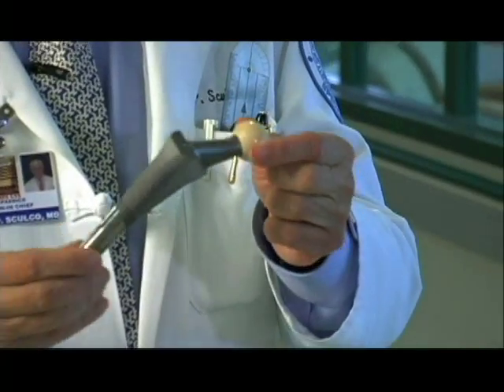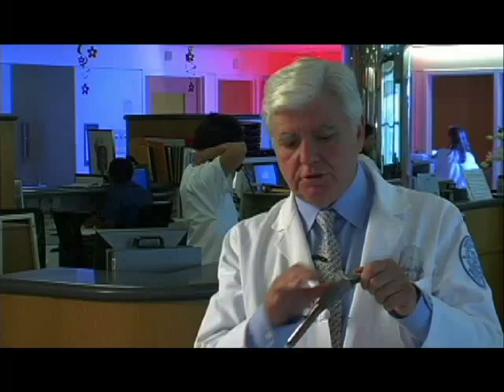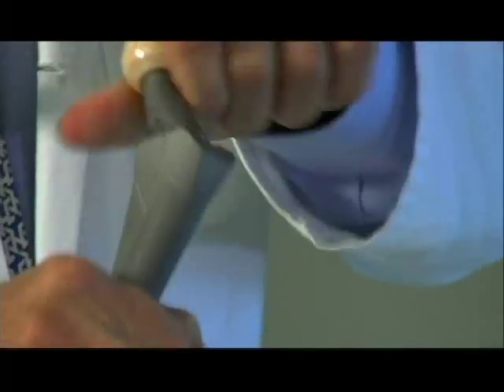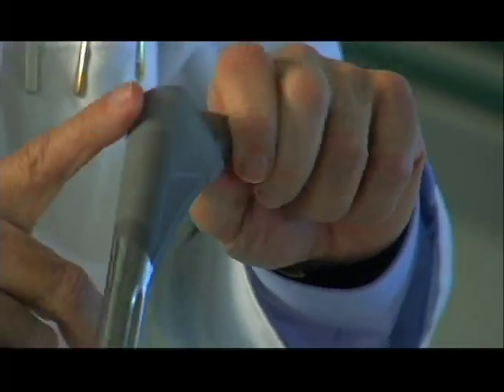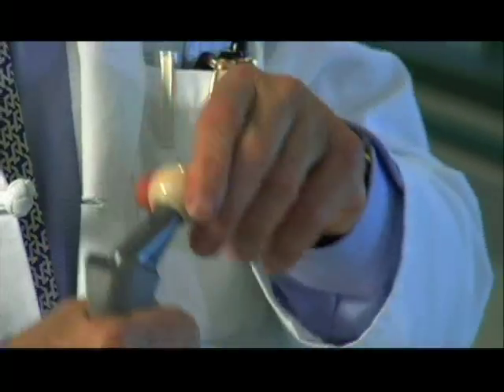This is a hip replacement of a more current design. It's made out of solid titanium and it has flutes on it which help with fixation into the bone. More importantly, it has a covering in this upper part of something called hydroxyapatite, which is what bone is made of. So basically when this is inserted into the bone, bone sees bone and grows into the device — and that's how the fixation occurs.